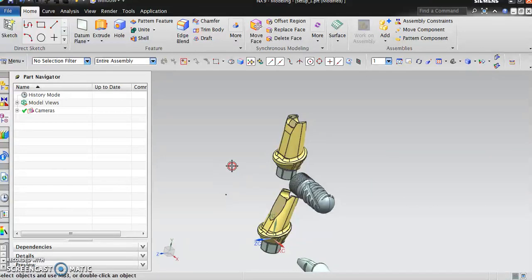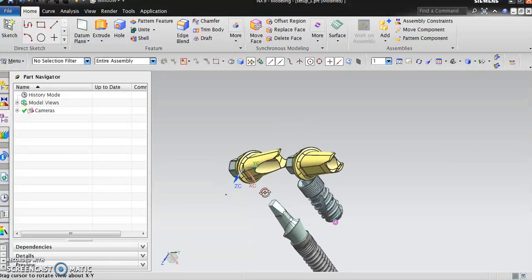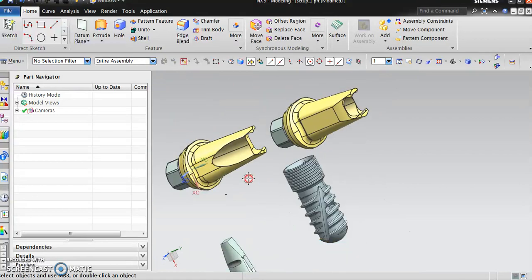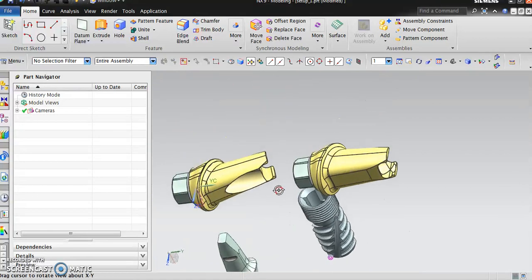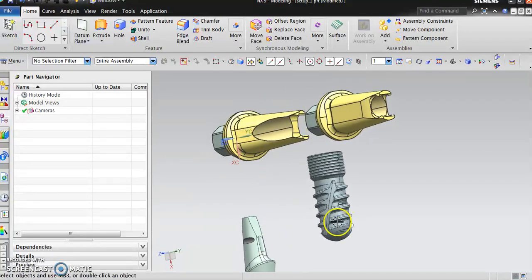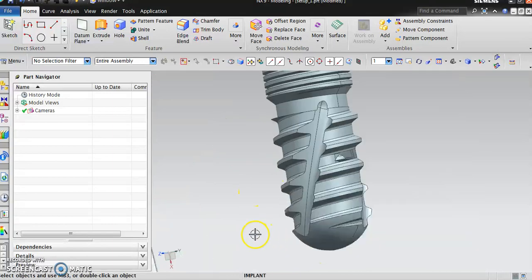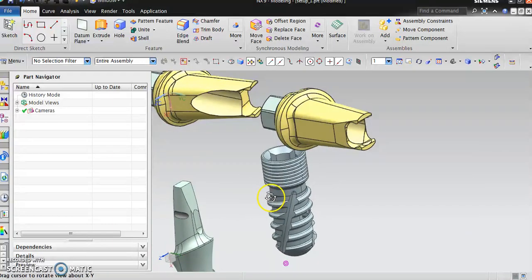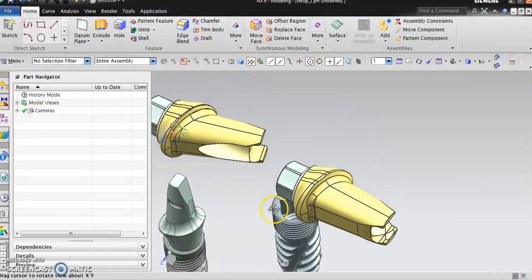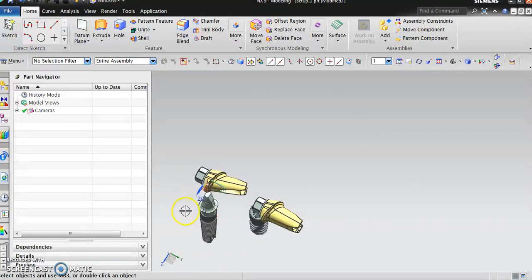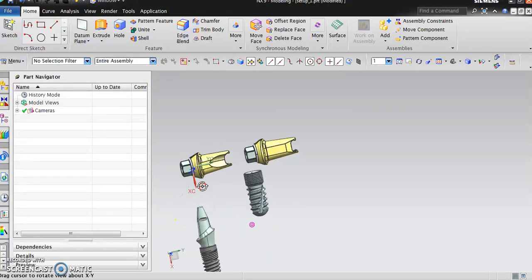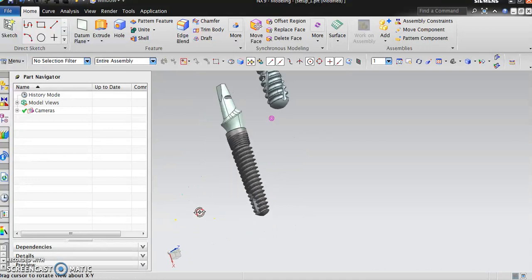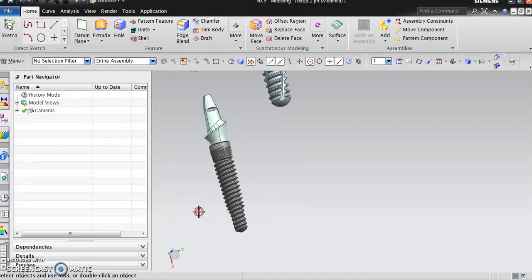You can see the bottom part of the implant that will screw in. You can see that OD thread with the flutes that will help in making a thread form on the bone or the soft tissue. You can see an ID thread where the top will be screwing in. Now the main part of the implant.